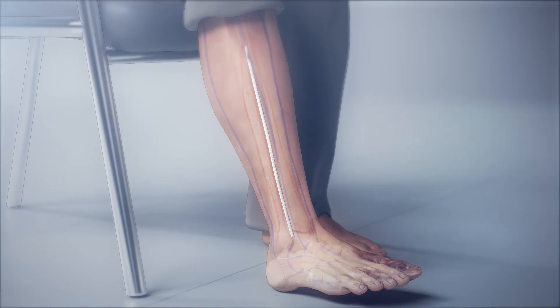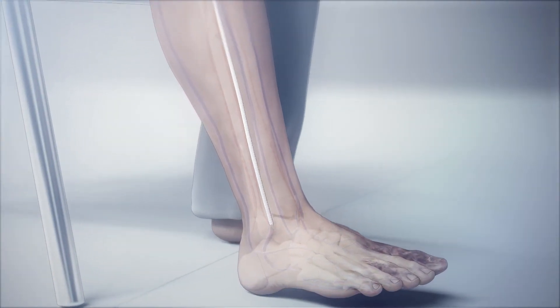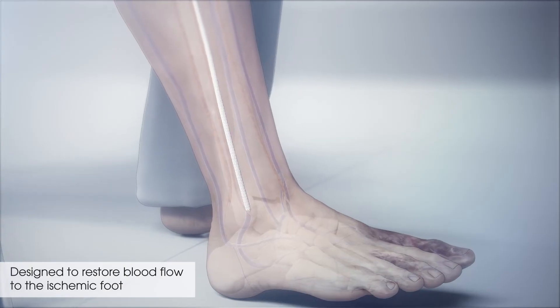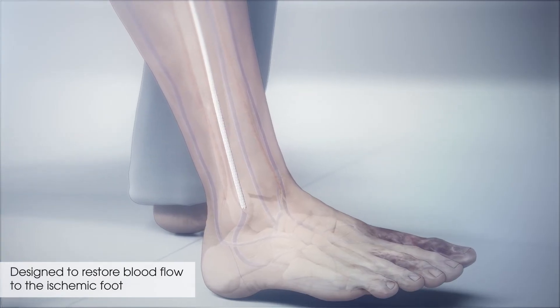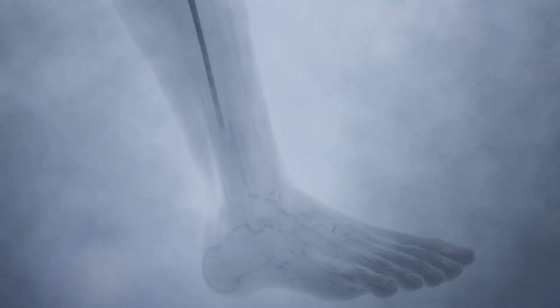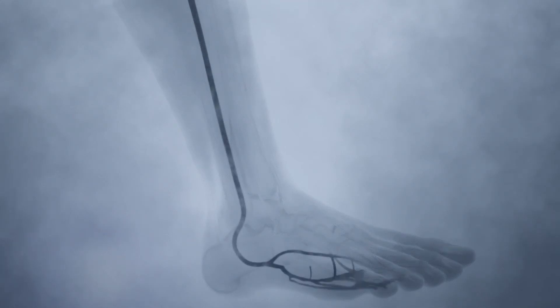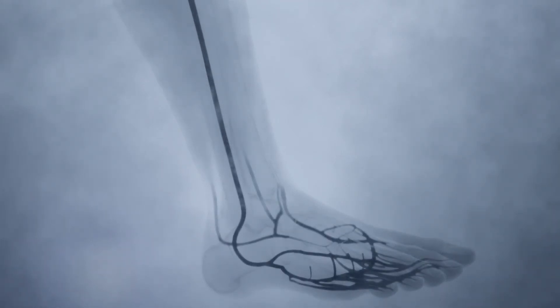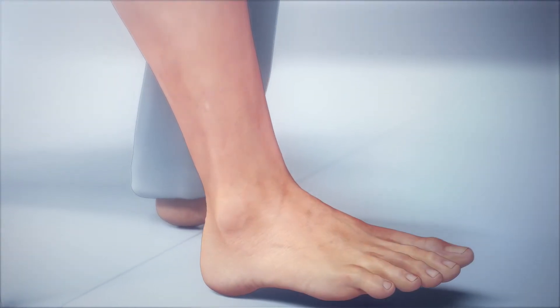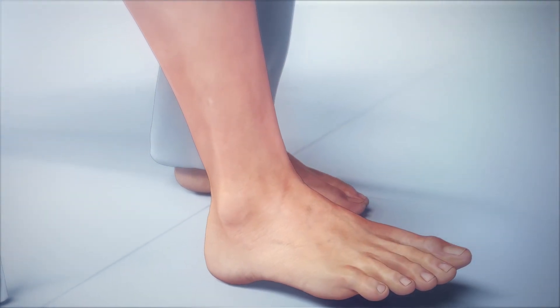The LimFlow system is purpose-built for transcatheter arterialization of deep veins and is designed to restore blood flow to the ischemic foot in patients where standard therapies have failed. An abundance of oxygenated blood in the tissue can relieve pain and promote healing of chronic wounds, reducing the risk of amputation.